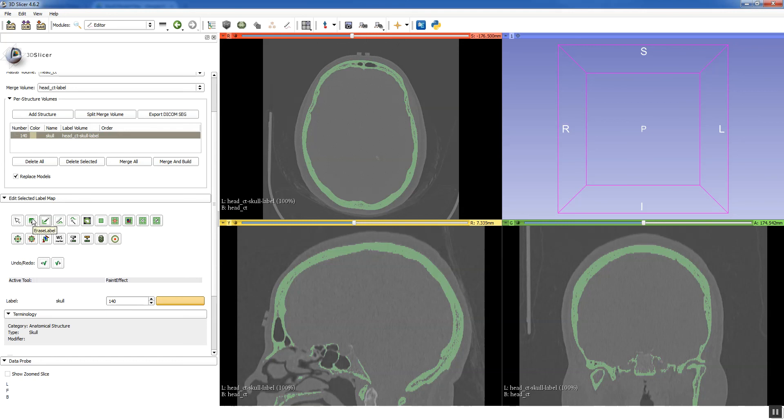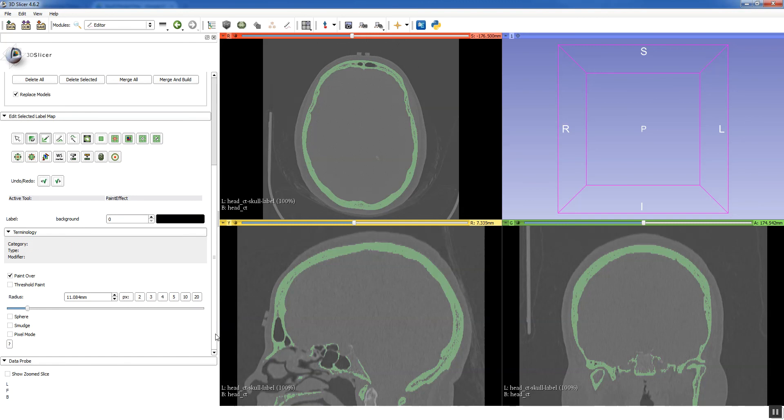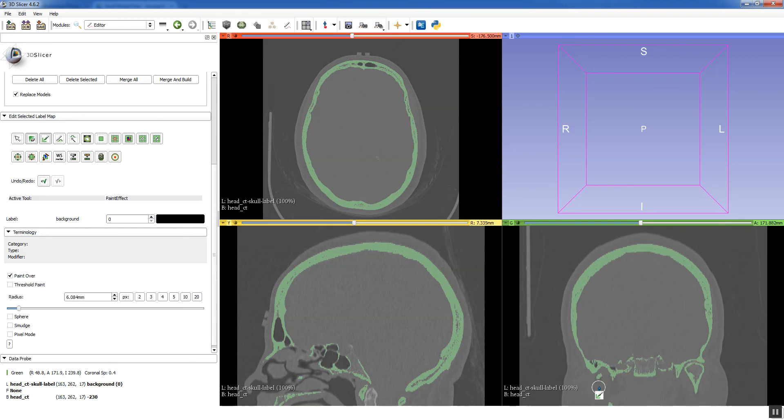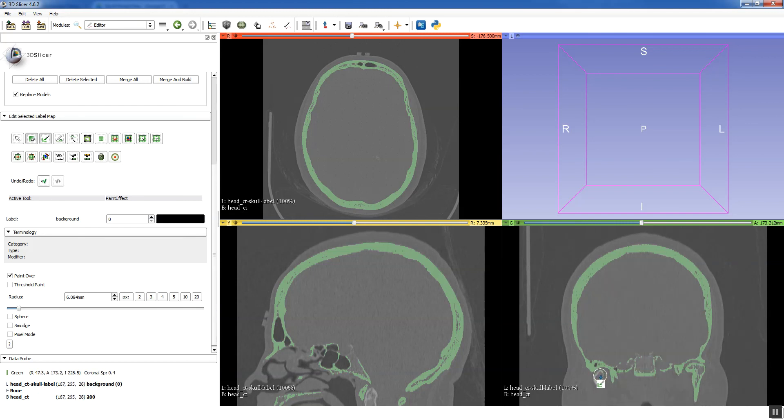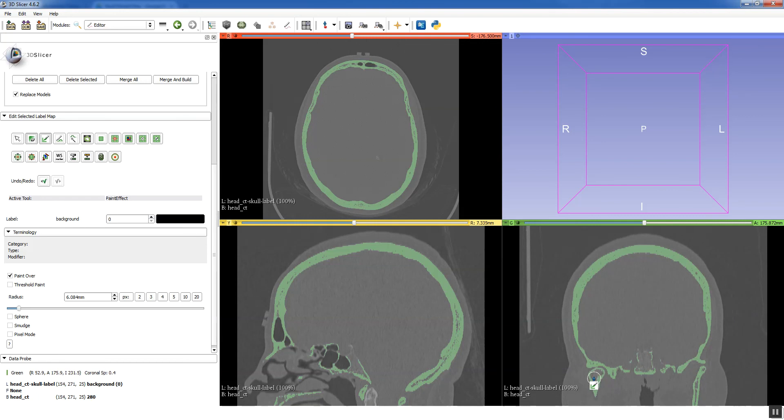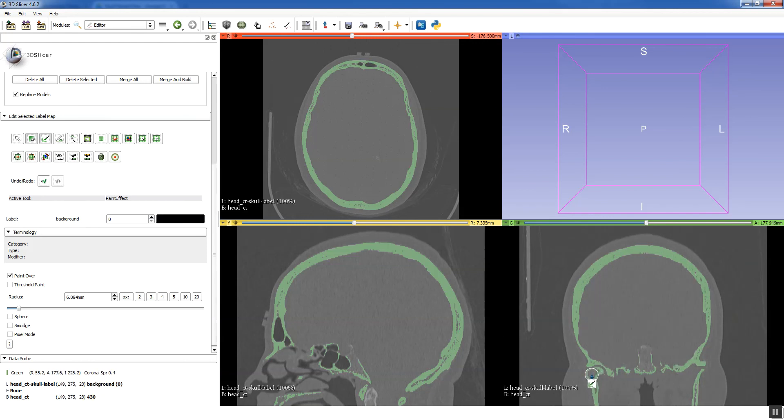That allows you to remove things. You can see here, it's a pretty big circle that I'll be working with. So I actually want to bump it down so I have a little bit more control. And now you can see that if I click anywhere on a segmentation, it removes that part of the segmentation. And basically what I'm trying to do is disconnect the mandibular condyle from the rest of my segmentation. Now you can see these areas I'm clicking, it doesn't appear to be connected to the rest of the model. And it's probably not. It's probably only connected at a point or two. But the thing you have to realize is that you're actually working in multiple planes. So sometimes if it doesn't appear to be connected in the coronal plane, it actually is in the axial plane.